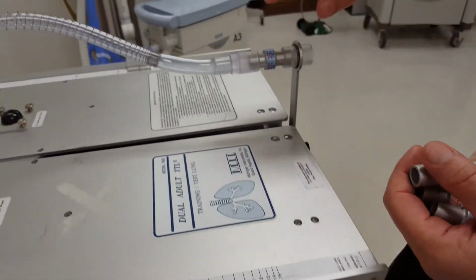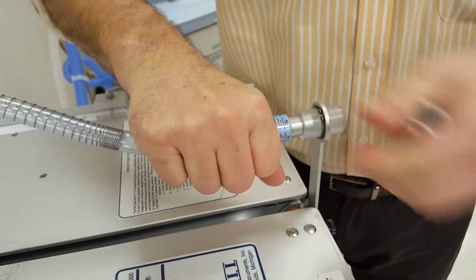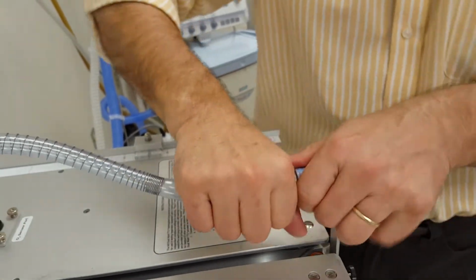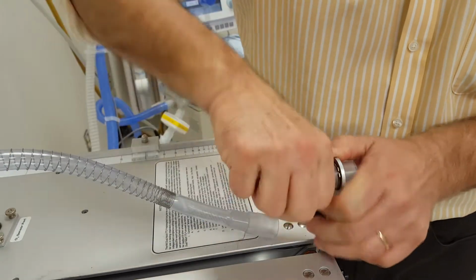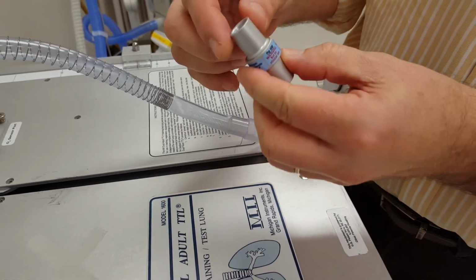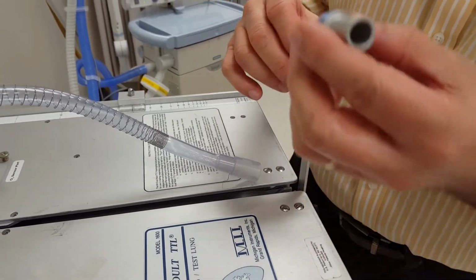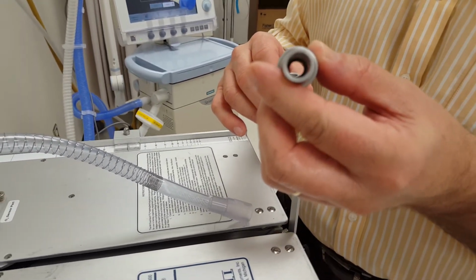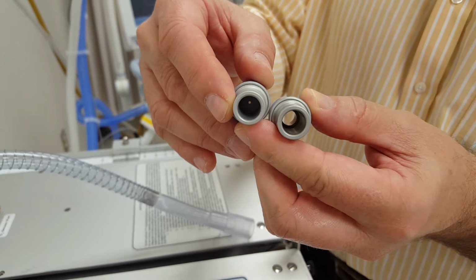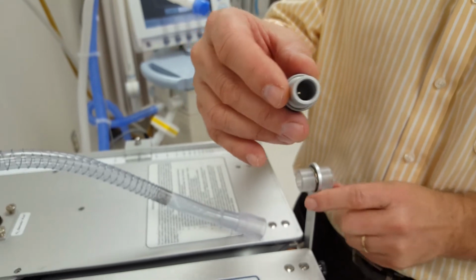These are super simple to change. All you have to do is come over here to where the Raw fits into the circuit. It'll take me a moment to move it, but okay. So we're taking out our 5 and going to put in, well, I happen to have 500 here. We're going to go from normal to a huge amount of resistance. Just out of interest, look, this is 5. You can see a huge opening there compared to 500. You can see there is hardly any place for air to get through.